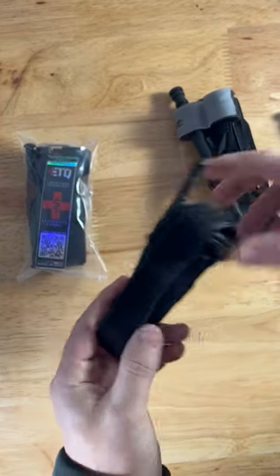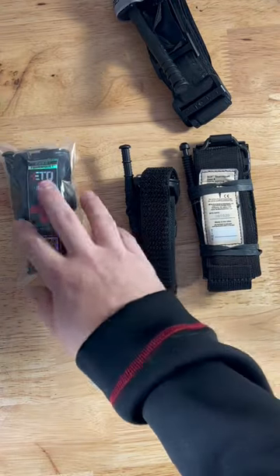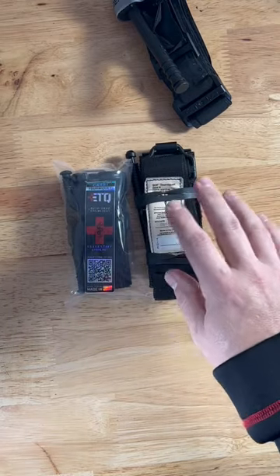These are considerably smaller — we're talking 65% smaller. The wide version is even 50% smaller, and it is a little bit wider, so if you're concerned about that, it's still very EDC-able.